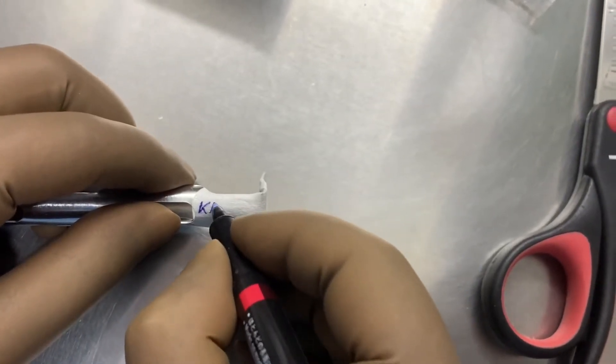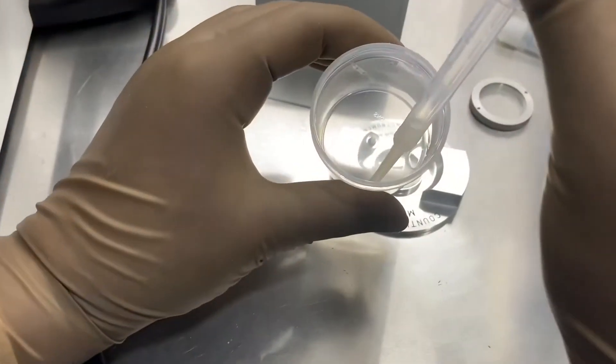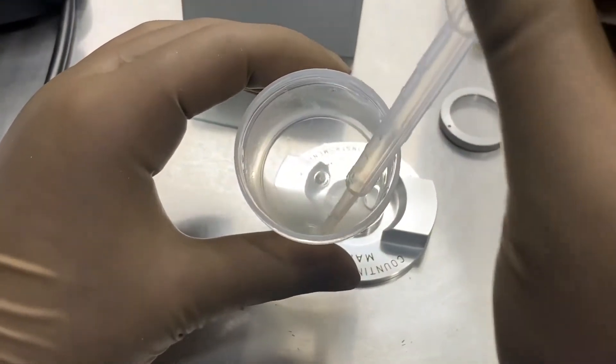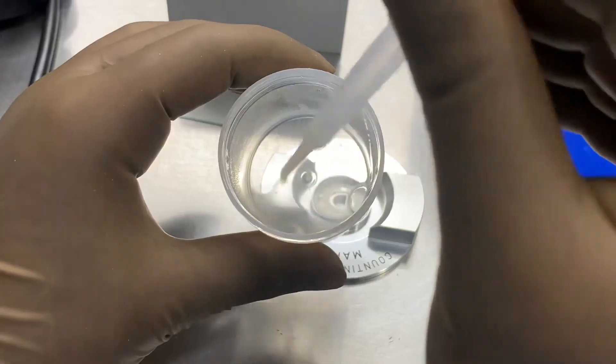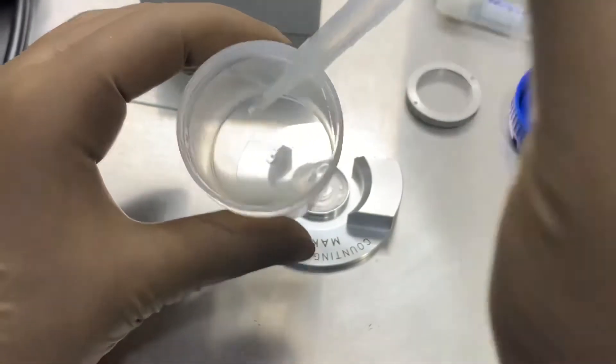Before going for freezing, the patient name is to be written. Then the semen needs to be confirmed that it has already been liquefied properly. There should not be any liquefaction problem.